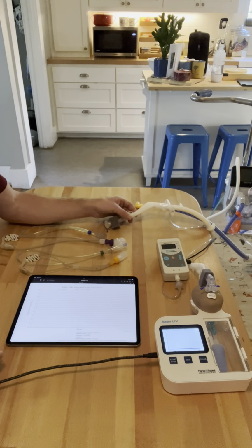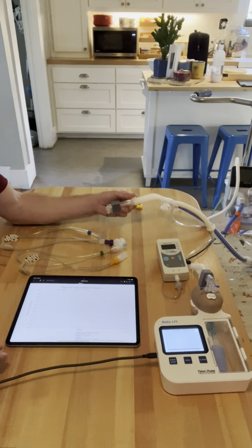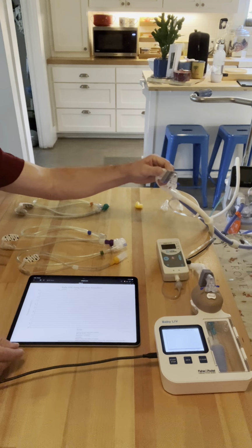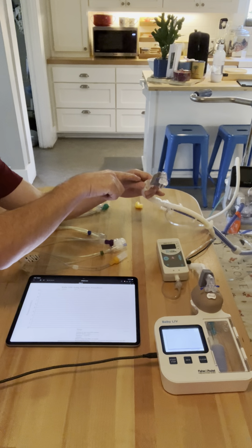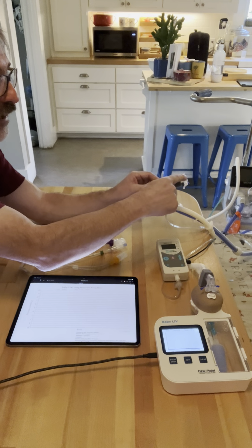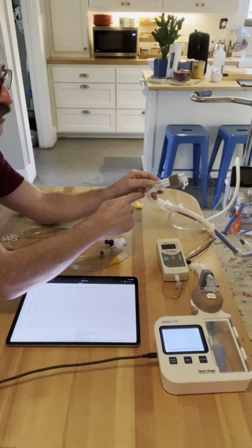Well, we've already incorporated a leak. The reason they require that leak is because of the third and final reason a CPAP interface is a CPAP interface: the bias flow, if you look to the side here, runs all the way near to the nose of the baby and then runs out through the expiratory limb.